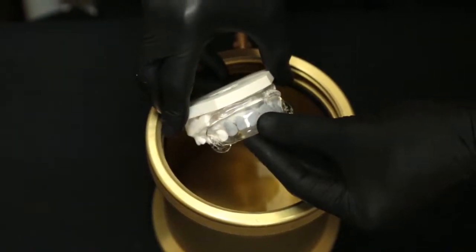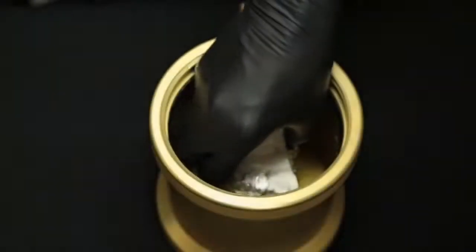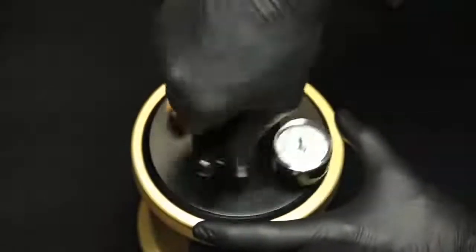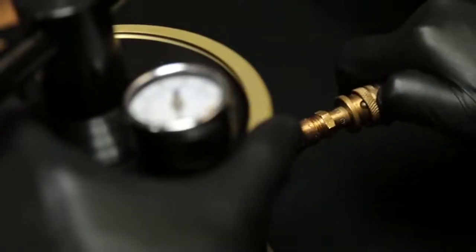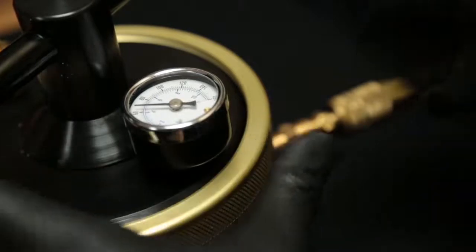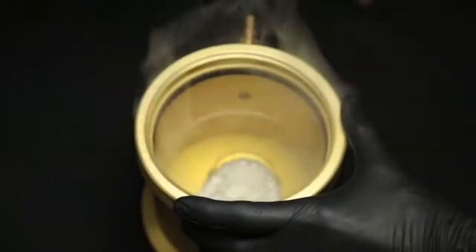The model and matrix are placed into a compressed air chamber to eliminate air voids from the material. The lid is secured and the air hose is connected to generate pressure. The material is pressurized until initial set is complete. After three minutes, the lid is removed after the pressure is completely relieved.